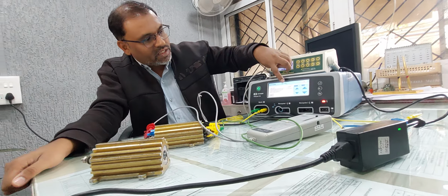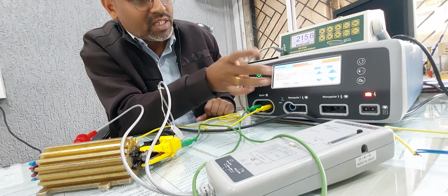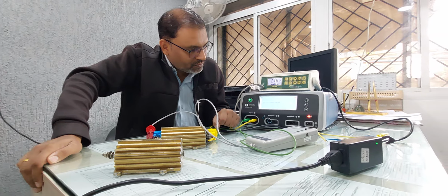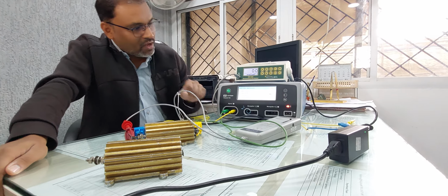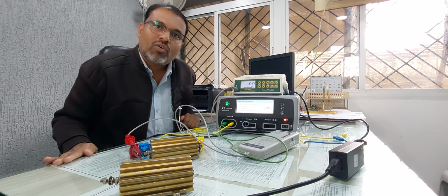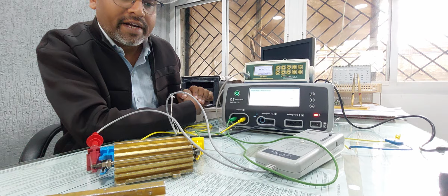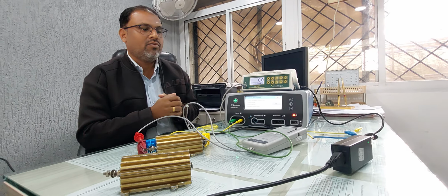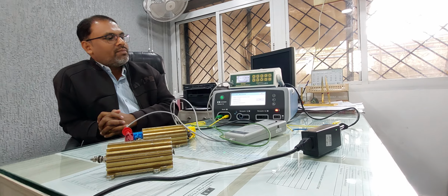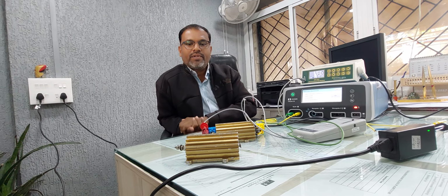After that, what is next? 215 volt. Just press start. It is 215.6. That is accepted. See, now in this way we have performed voltage calibration for the cautery, right? So the next step is the current calibration. Now we have to utilize some alternating setup for this. Suppose you want to perform a calibration for any type of cautery, you have to use this type of setup, right? Thank you.